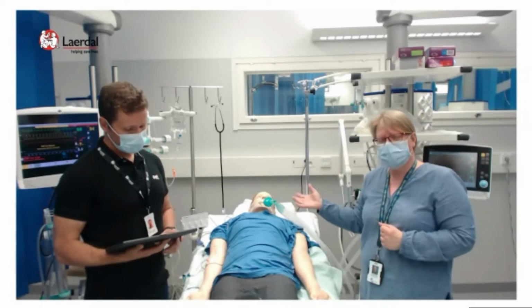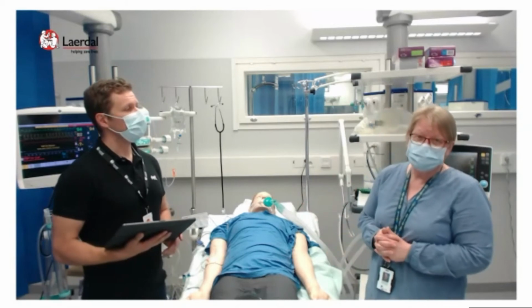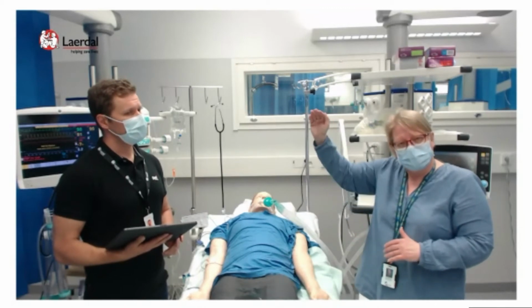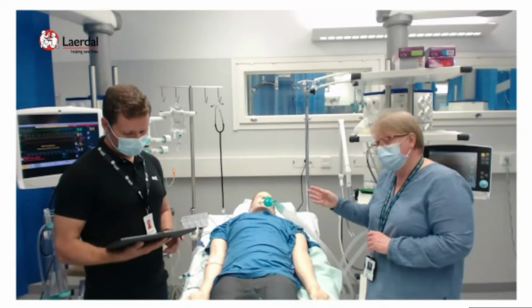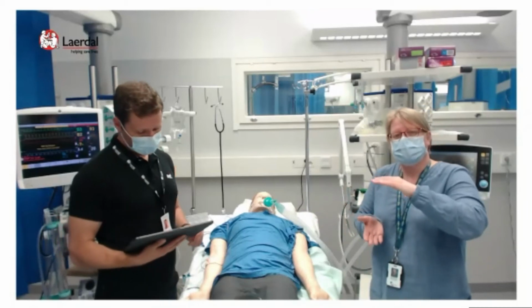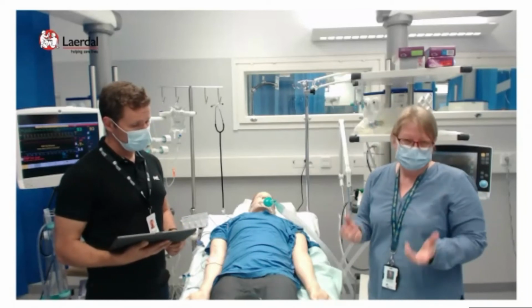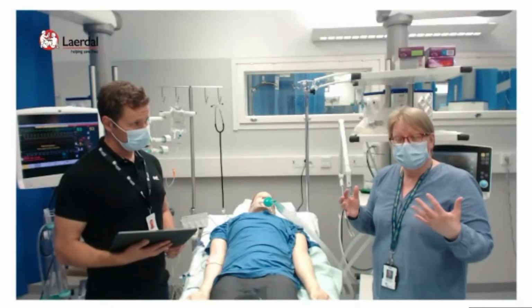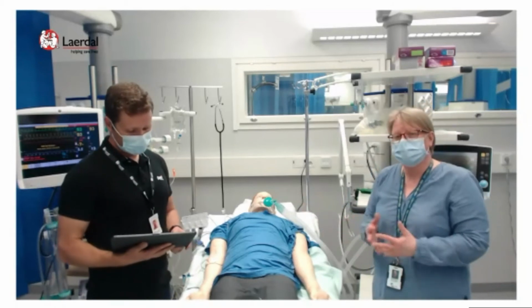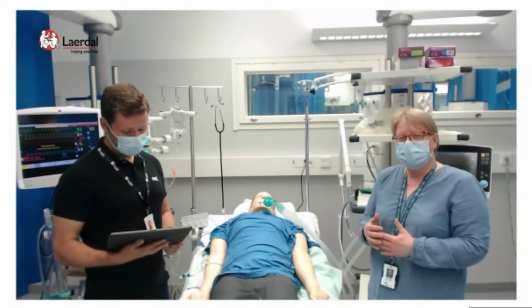So you have to be very careful that the patient is not underventilated. So the tidal volume goes down, down, down. Frequency is the same, so the carbon dioxide gets up, up, up. But the pressure regulated volume control is volume control which is pressure regulated. So there's volume and there are pressure limits. So it protects lungs maybe better. There is no good evidence about which mode, volume control or pressure control, is better, but it depends on what you are familiar with and what you are used to doing.